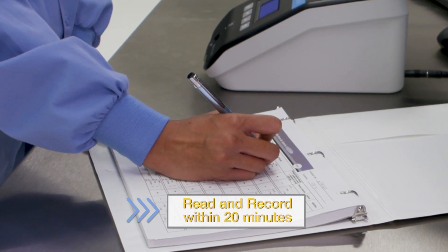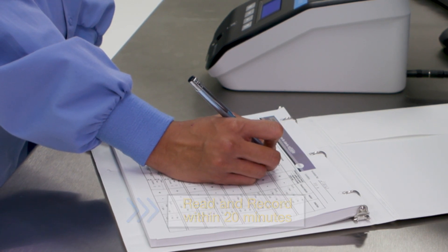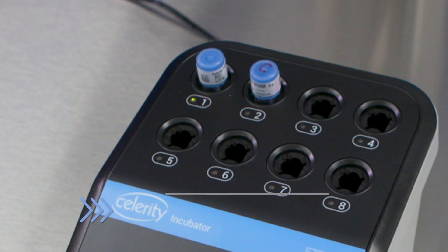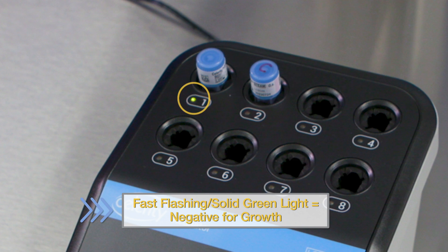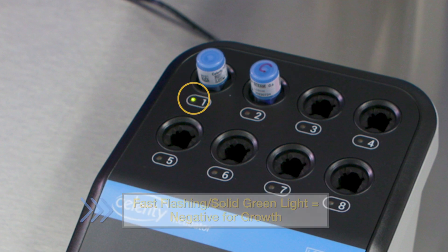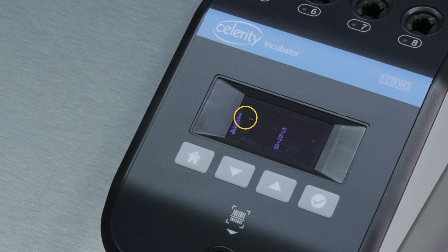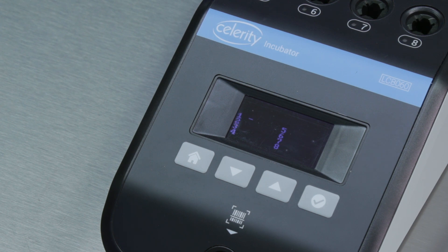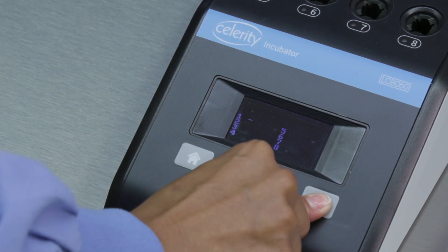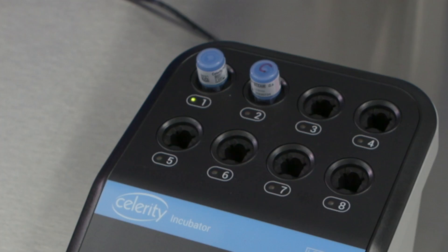Read and record the test and control BI results within 20 minutes. The BI is negative for growth when the incubator demonstrates a fast flashing green light, an optional audible alarm, and a minus sign on the screen next to the corresponding well number. Acknowledging the result will silence the alarm if the buzzer mode is on, and the LED will turn solid green.